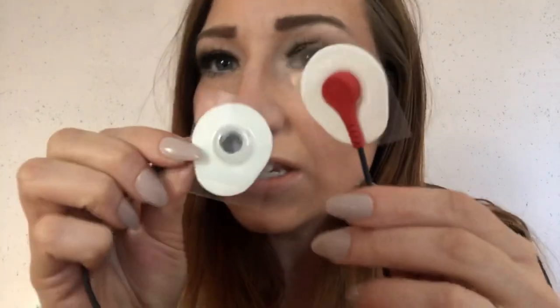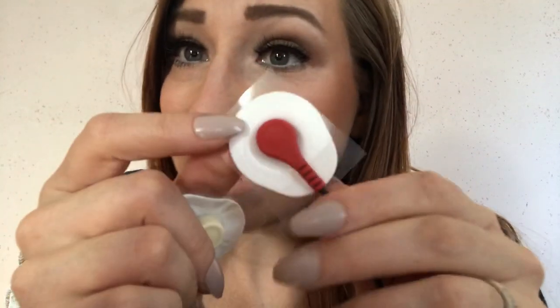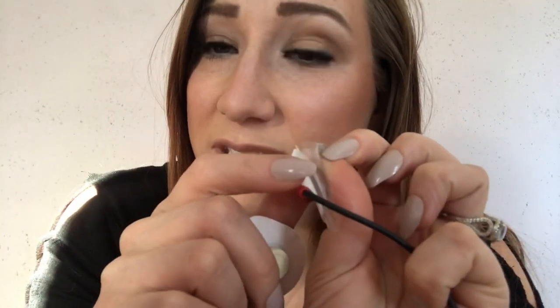I'm going to show you how to put this on and tell you a little bit about how to wear it. You're going to get these big strips of plastic that have these electrode pads on them. You're supposed to change the pads every other day — do not leave them on longer or you will get like an itchy blister open sore thing that really hurts. The recommended way to put these on, they say, is to peel this first and then apply the cord to the white patch.